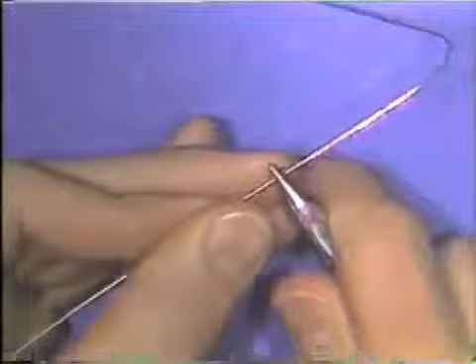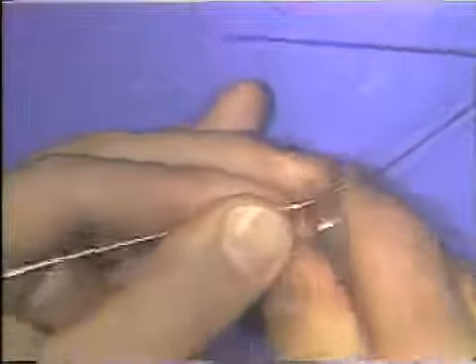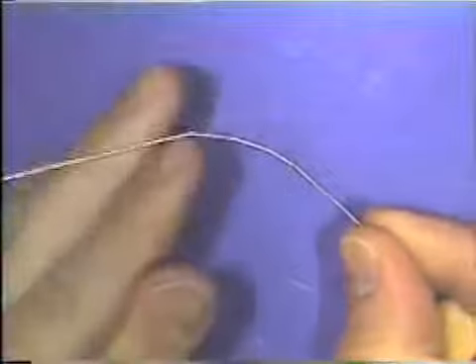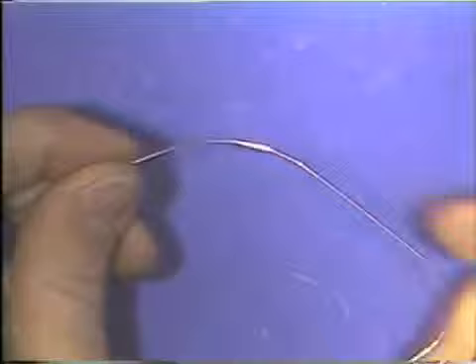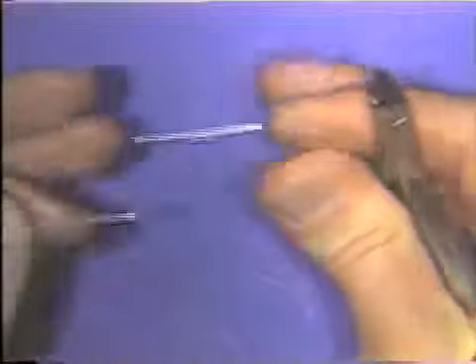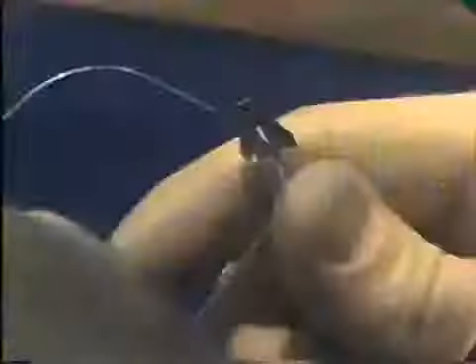Many times, a curve will start out to be smooth and continuous, and in the end, you will look at it, and it is actually a series of overly bent areas and overly flattened areas. To correct this, the flat base portion of the plier can be used to open up the overly curved portions of the curve by placing the wire all the way back in the plier and squeezing it.